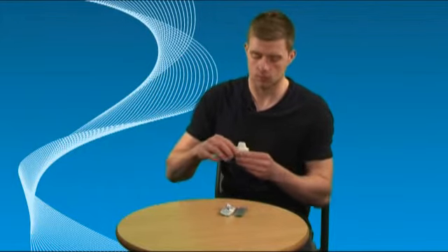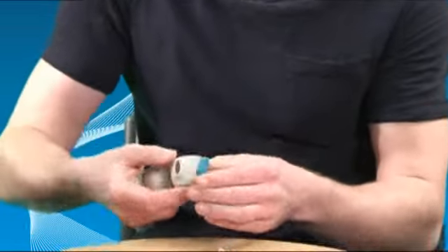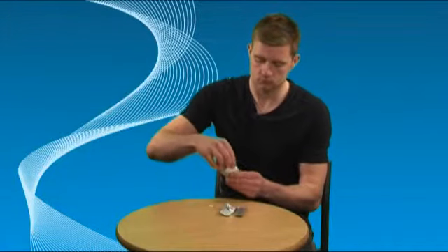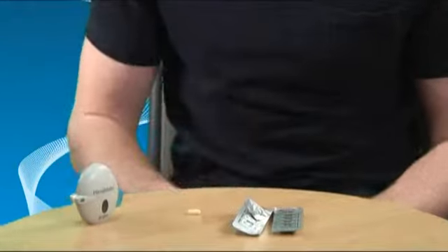To empty the inhaler, open the dust cap and mouthpiece, tip out the capsule and throw it away. Close the mouthpiece and the dust cap.